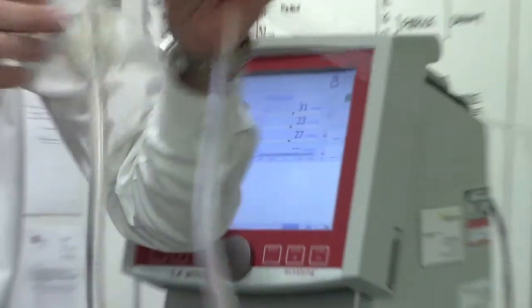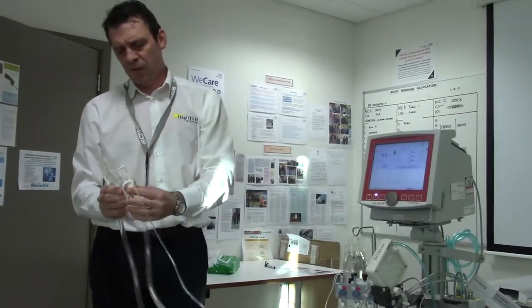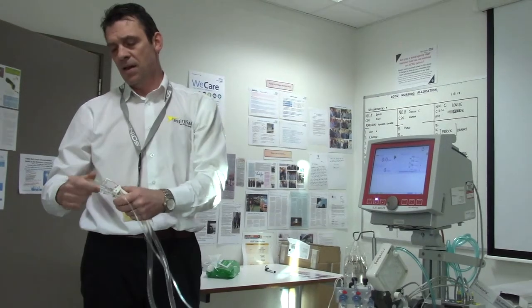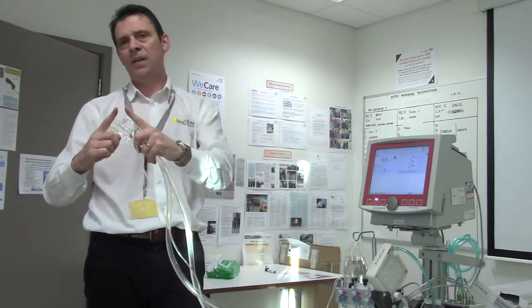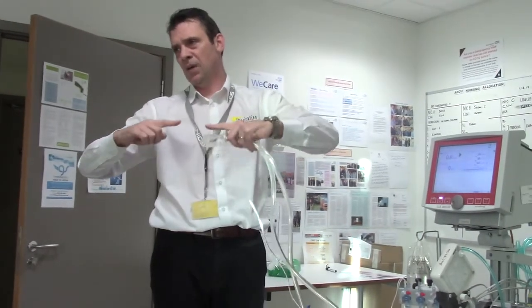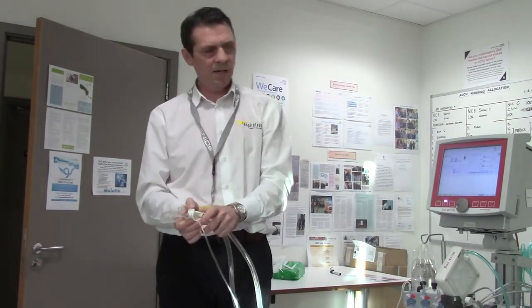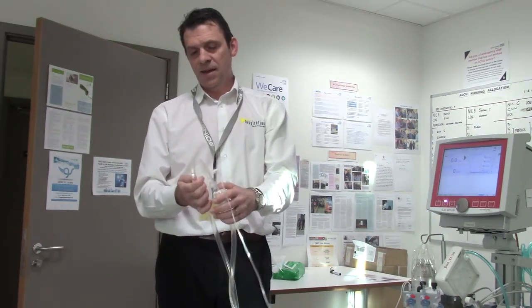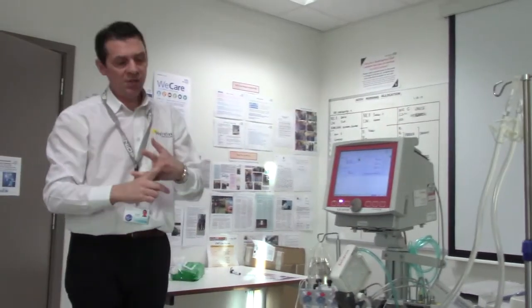What you will do is then take this system to the patient. This is where you have the conflict of sterile versus relatively non-sterile. These are big clamps to help prevent loss of fluid when you take off the U-bend. Take it to the patient — you will have your cannula and this end together. You will have a big 60ml syringe of fluid that one person trickles in, then nip the two together to make sure there are no gaps, seal, and do the same for the other side. Once your complete circuit is ready and the cannula is stitched in, you're ready to start.